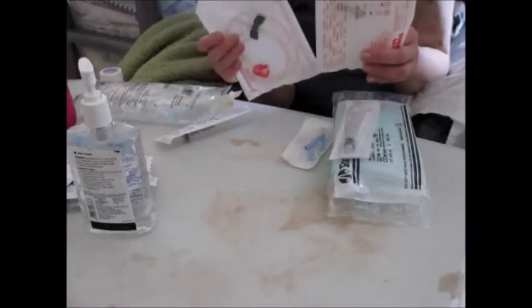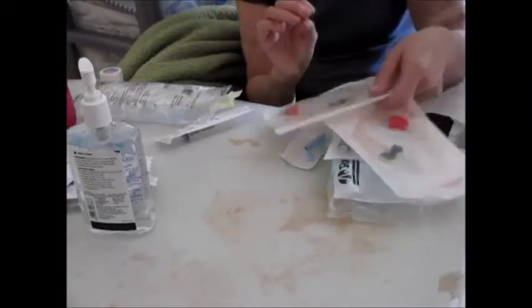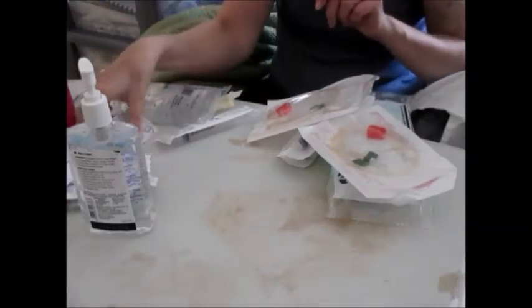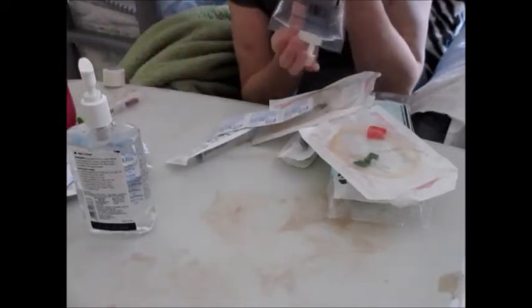The reason my needles are both red arterial needles is that I need a special length to insert and remove them by myself, and they don't have any of the venous ones — the blue ones. I have three sani cloths for cleaning the ports and cleaning the table. My anticoagulant is tinzaparin, and I also have saline for flushing the lines at the beginning and end of dialysis.